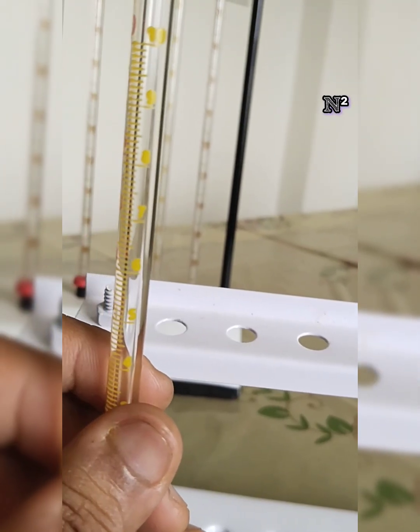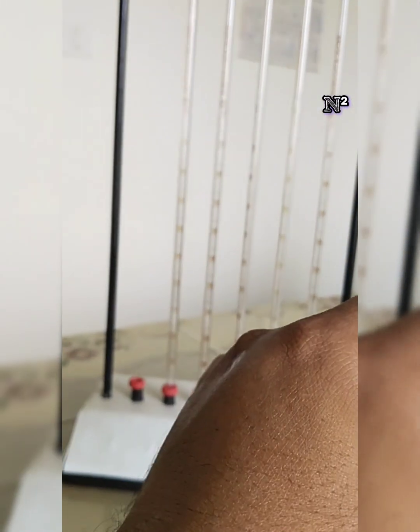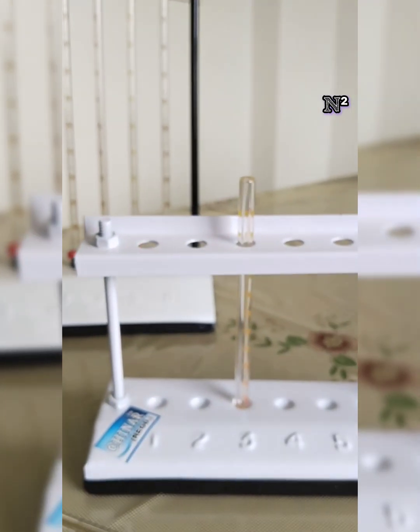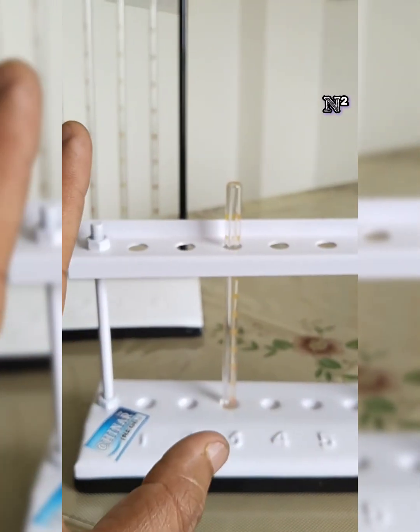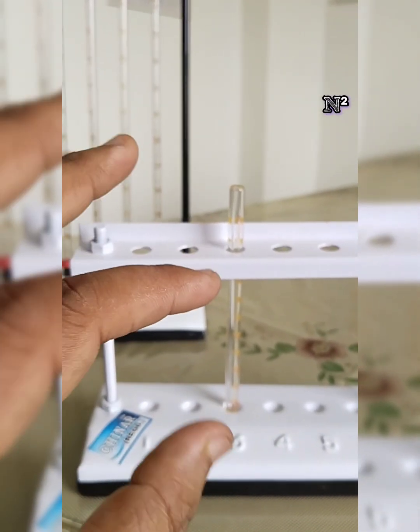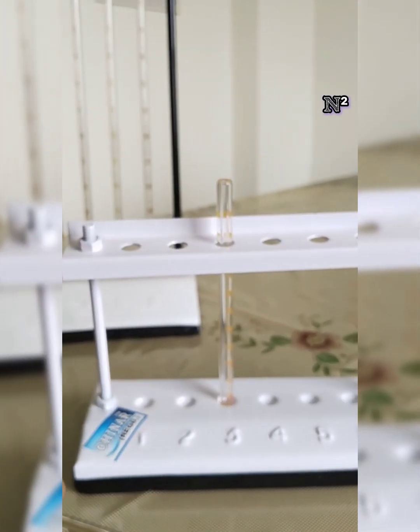Now, as I've told you, in the case of the Westergren's pipette the blood was mixed with 3.8% sodium citrate. But in the case of the Wintrobe's tube, the blood samples are mixed with ethylenediaminetetraacetate or double oxalate solution. So we keep this blood in an anticoagulated form and then we conduct the experiment.